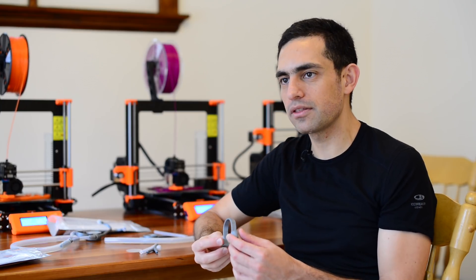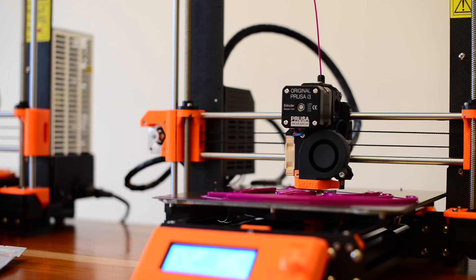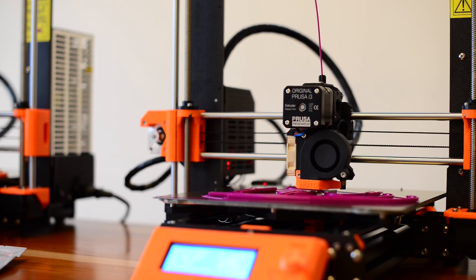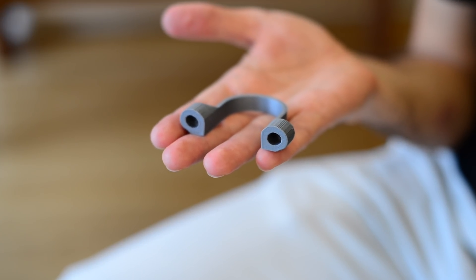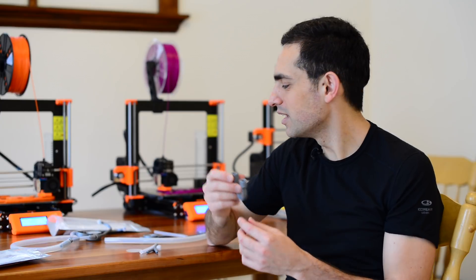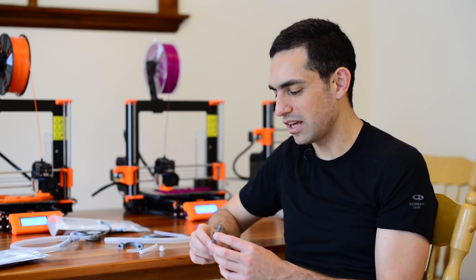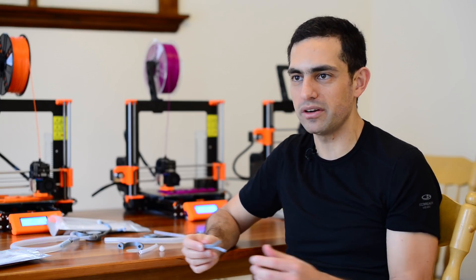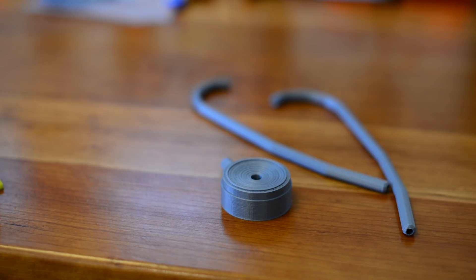The first part is 3D printed parts. These come off of a 3D printer, like you see behind me, and basically what that does is deposit layers of plastic one by one until it comes up with an intricate shape. These are from a kind of plastic that can be easily recycled and is available anywhere — it's the same kind of plastic that you would use in Lego. So it really is everywhere.